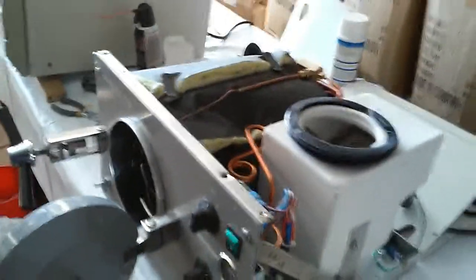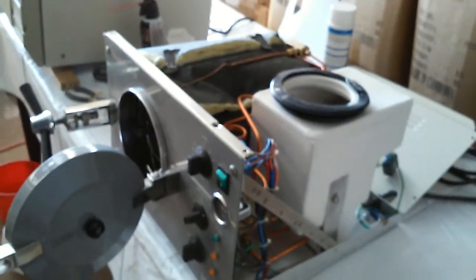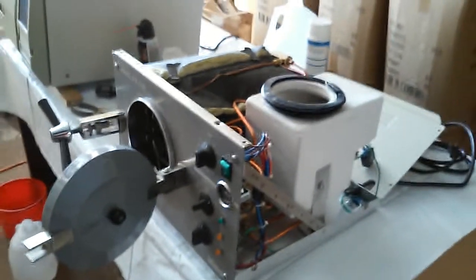Normally, as long as you have an ohm meter, it will be very easy to do the troubleshooting work.